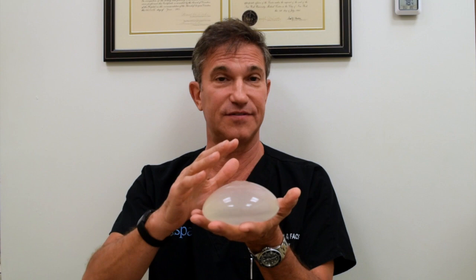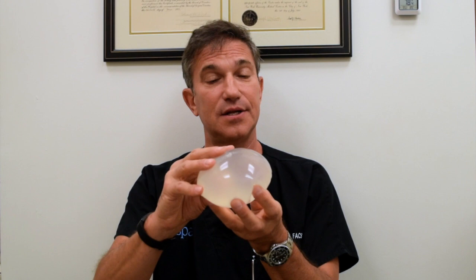What I'm holding in my hand right now is called an ideal implant. This is a form of saline-filled implant — the FDA actually calls it a structured implant, which is a new name they've given because of this implant. It is a silicone shell filled with salt water.